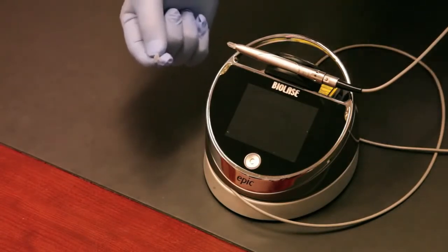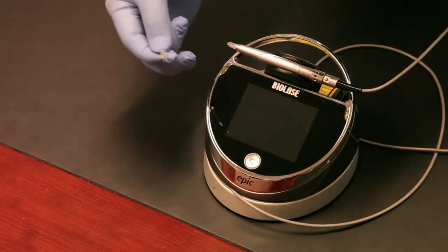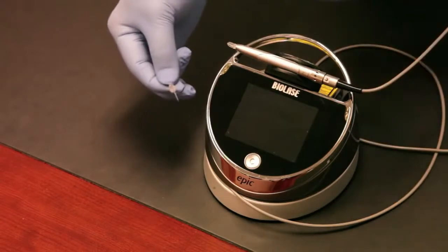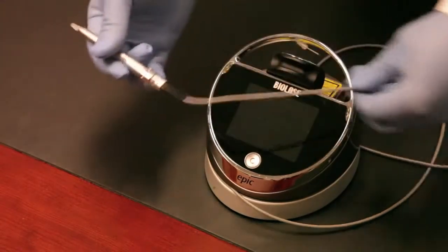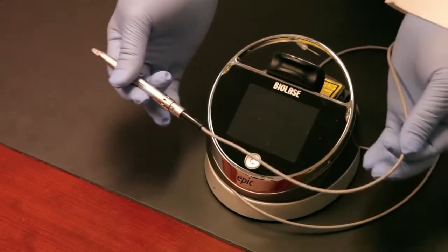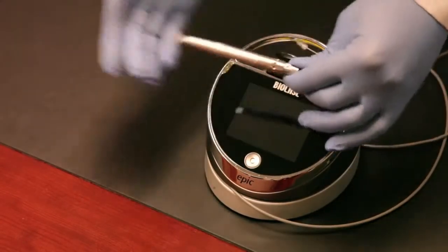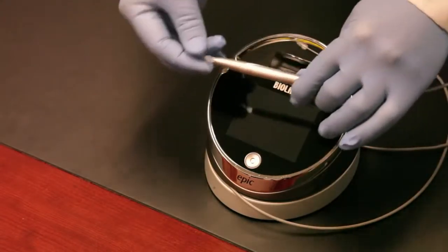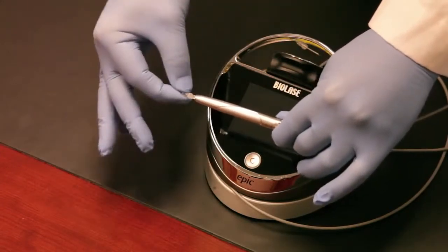The concept of a disposable surgical tip is something that Biolase invented and brought to market four or five years ago. Of course all the other diode laser manufacturers have this sort of system now, but some are still using the old-fashioned system where you actually have to strip and cleave the actual exposed fiber optic cable. We've designed and engineered a really convenient system for you.